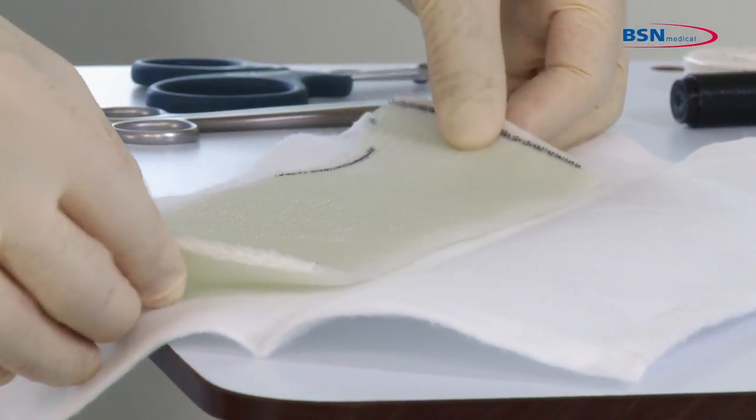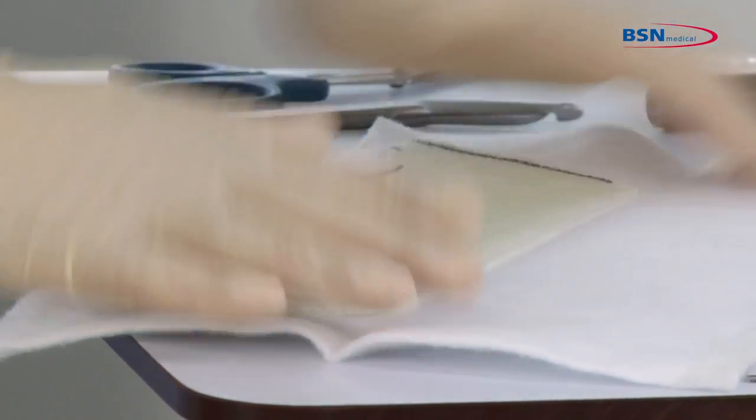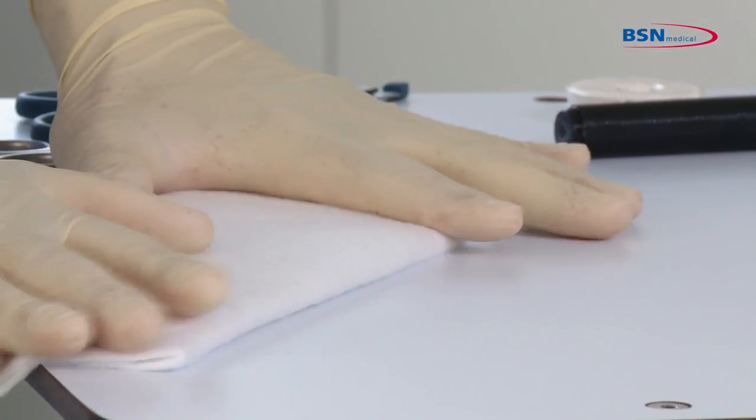Place the substrate back into the padding, close it, and trim the overlapping padding, leaving a margin of padding on either side.